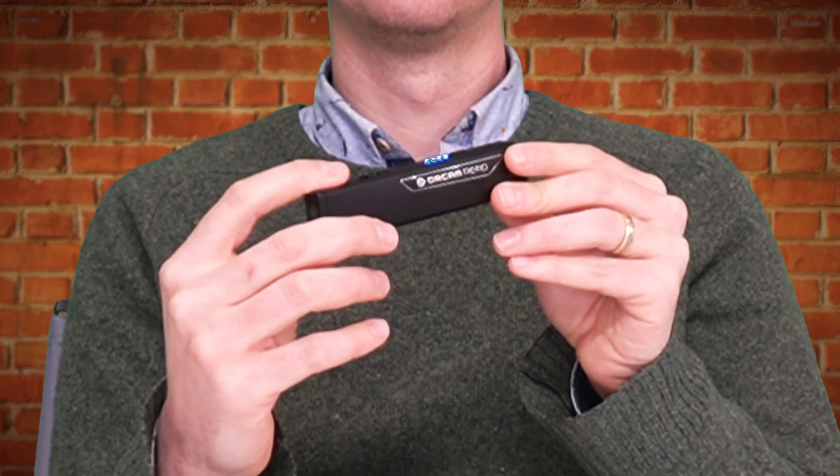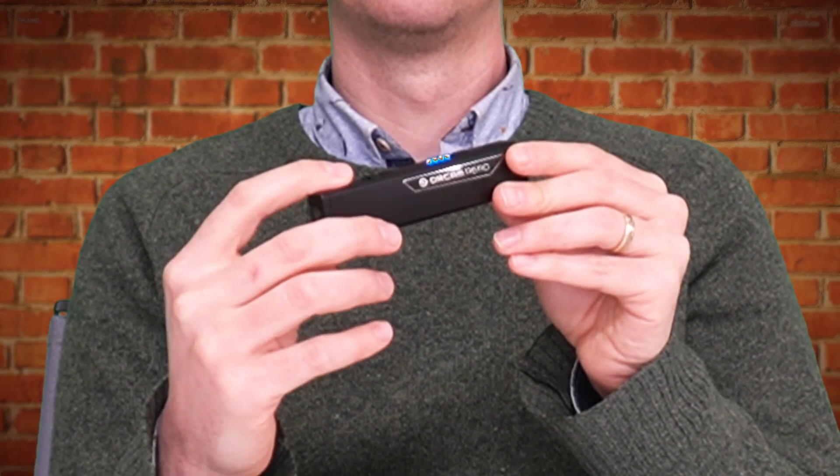You can also change settings using voice control. While the device is not speaking to you, you can double press on the picture button and then give a voice command. So I'm going to ask it to change the volume using my voice — 'Volume up.' And it responds: 'Volume maximum.' So without pressing the volume increase button, I actually did that with my voice instead. Very cool.